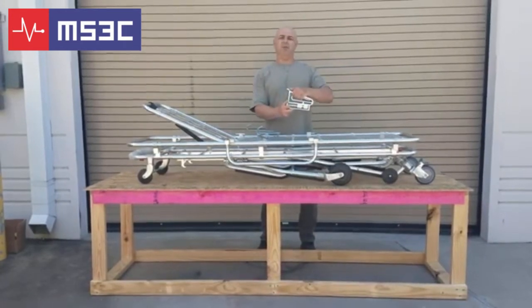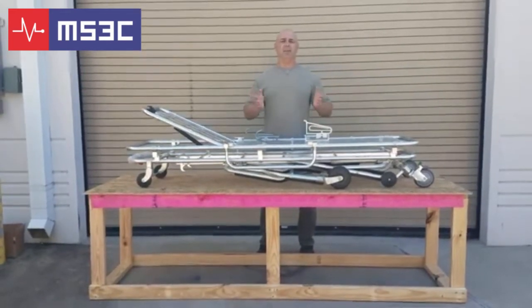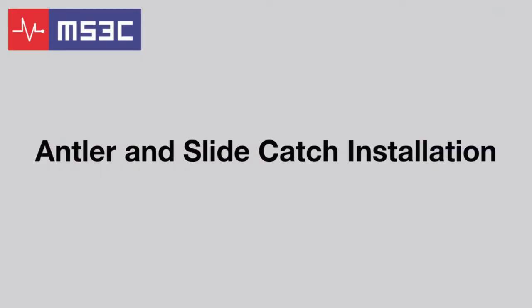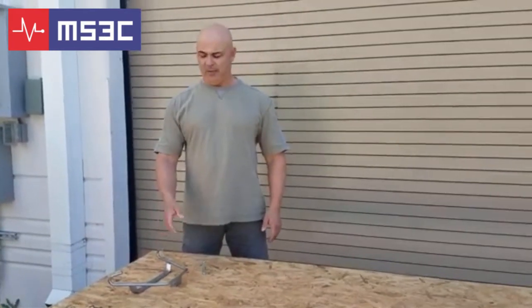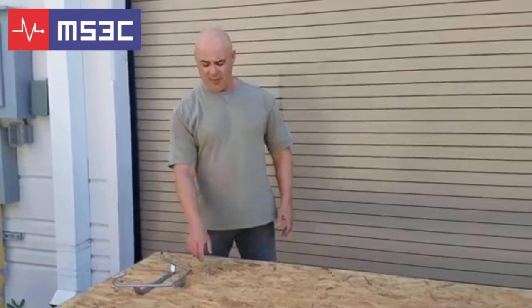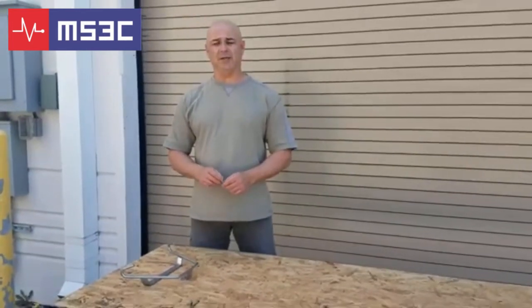I'm going to go ahead and install it so you can see how it's done, and then we're going to put the stretcher back on so you can see how the unit operates once it's inside the vehicle. The entire process takes just a couple of minutes. Once you mark the holes, you pre-drill them. For the purposes of this demonstration we used screws, but this unit actually comes with bolts and nuts, and that's what you use to lock the latches into place.